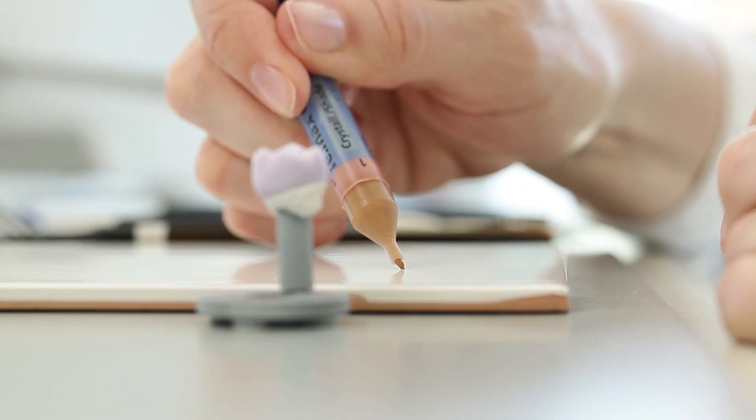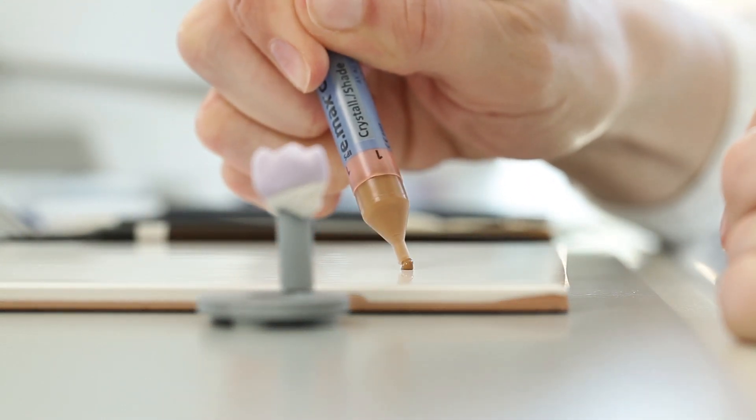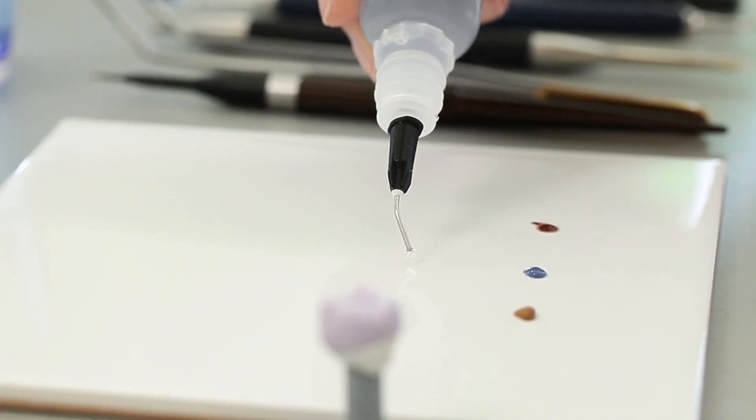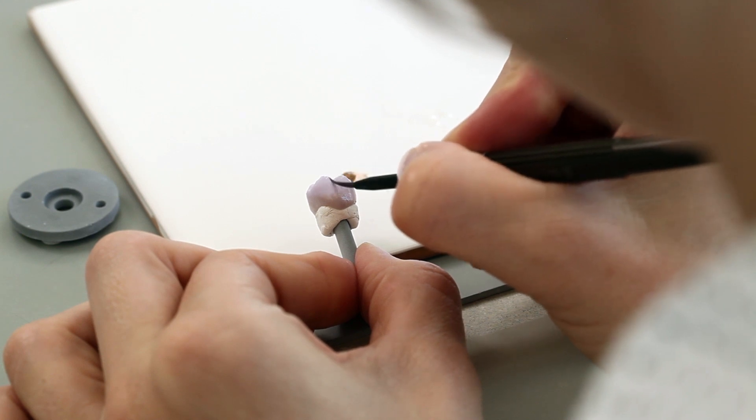If needed, dilute the IPS Emax CAD crystal shades and stains with some IPS Emax CAD crystal glaze liquid and then apply them thinly on the restoration.